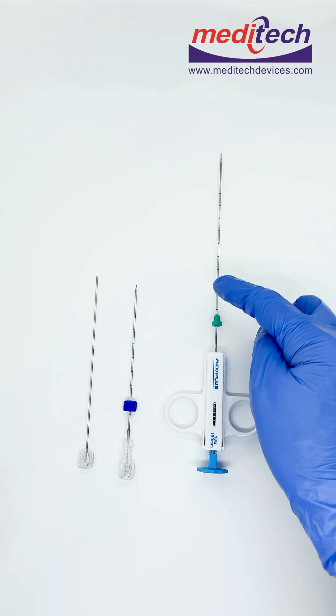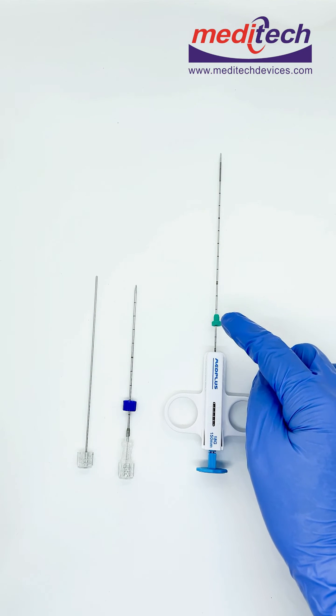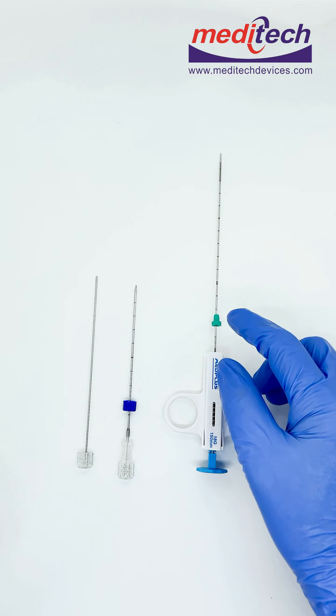Centimeter markings with the centimeter depth guard give more precise biopsy.